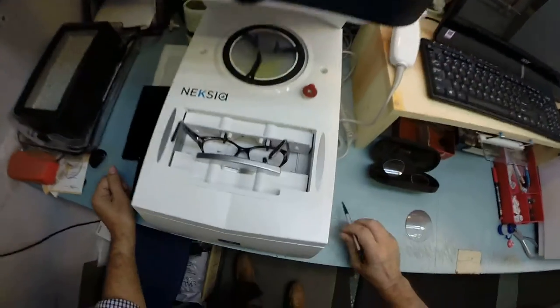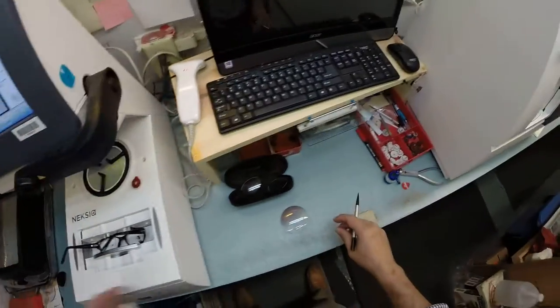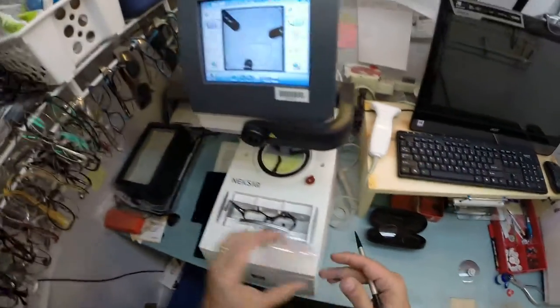The little silver button on the back is a magnet that's going to do its job twice. The first time is holding it in place in the arm here. Now I'm going to take my stylus, hit the button, and the block is going to be placed on your right lens.